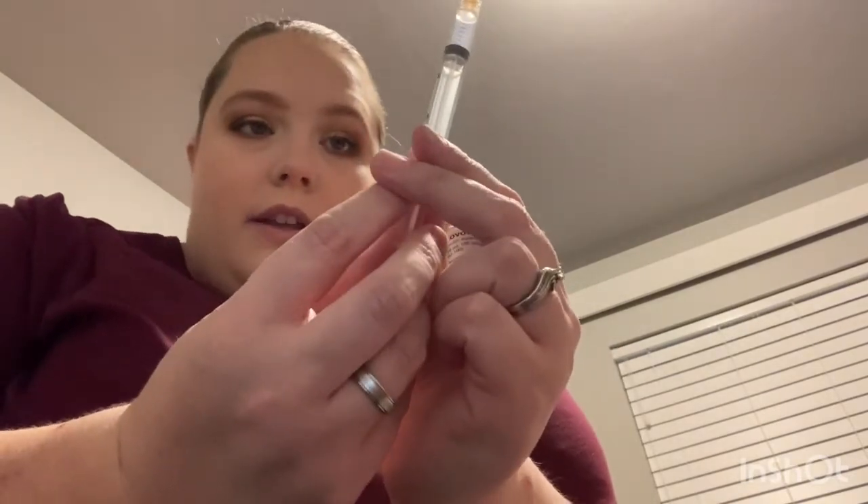Here's the new reservoir for the pump — it's also 3mL. Pull it out of the package. To get the insulin out, you draw air first. I do 110 units, which lasts six days because of how little and young she is. So that's 110 units of insulin — one unit is like a drop.